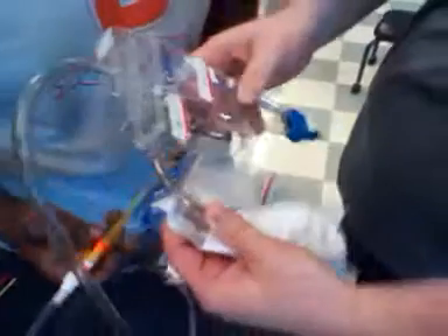That's a Foley catheter and that's what's used more in intensive care. They fill up right here and then they dump it. This is the indwelling — it goes here first and then they'll do this and dump it.